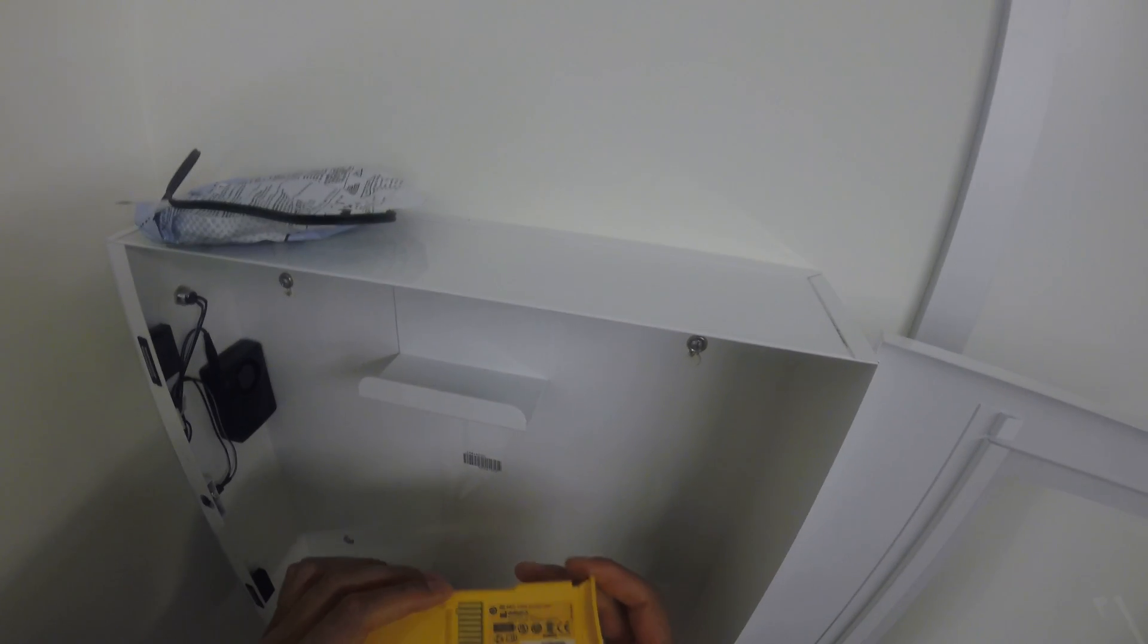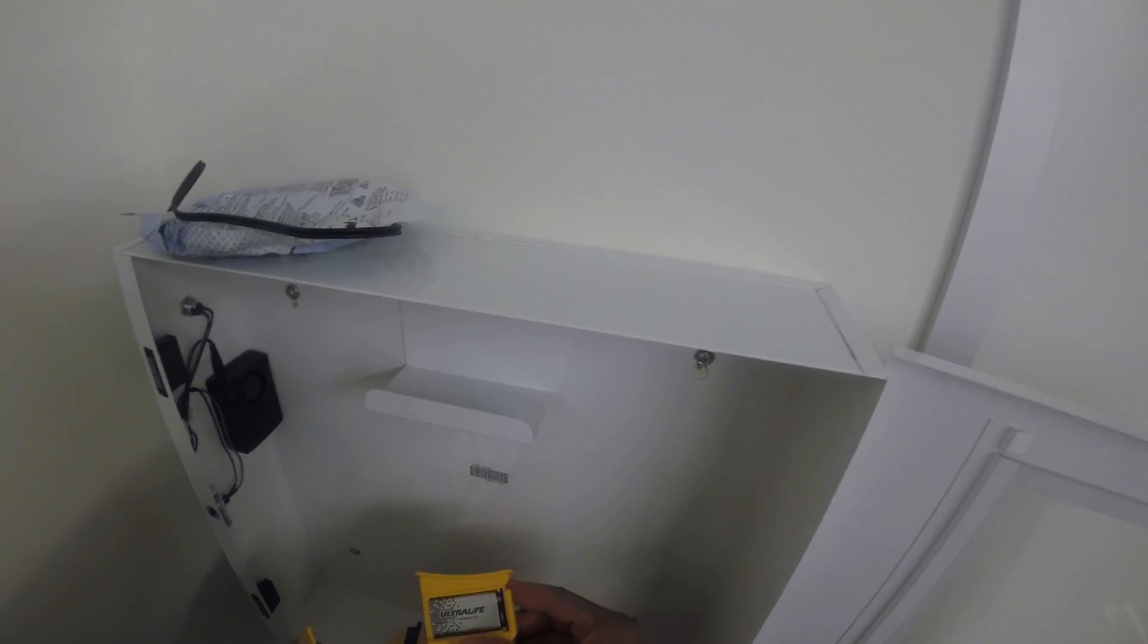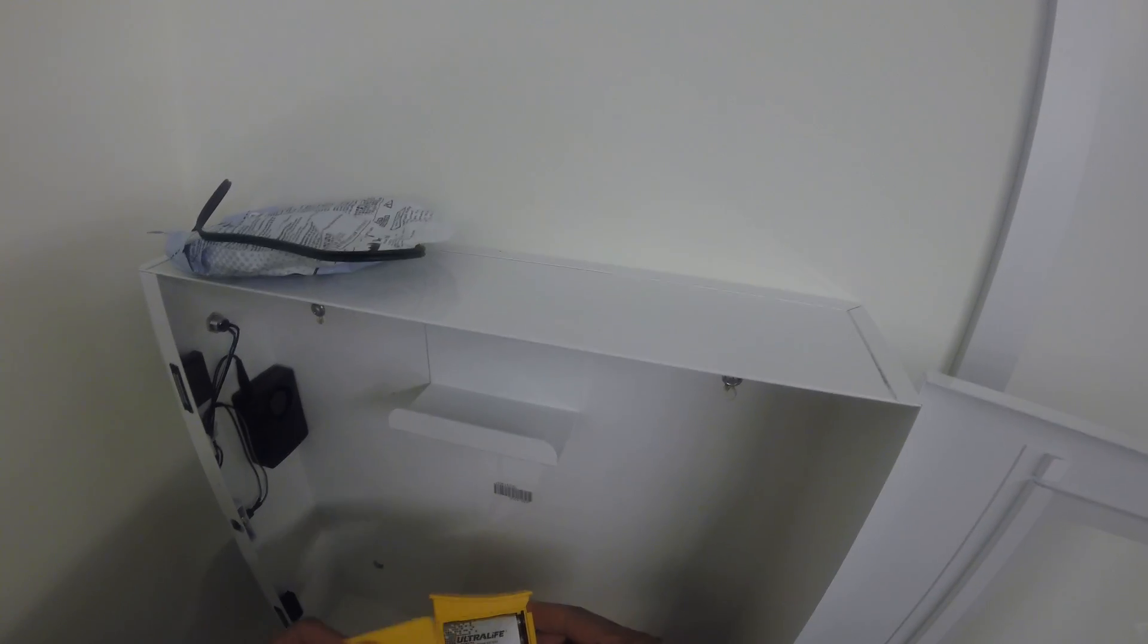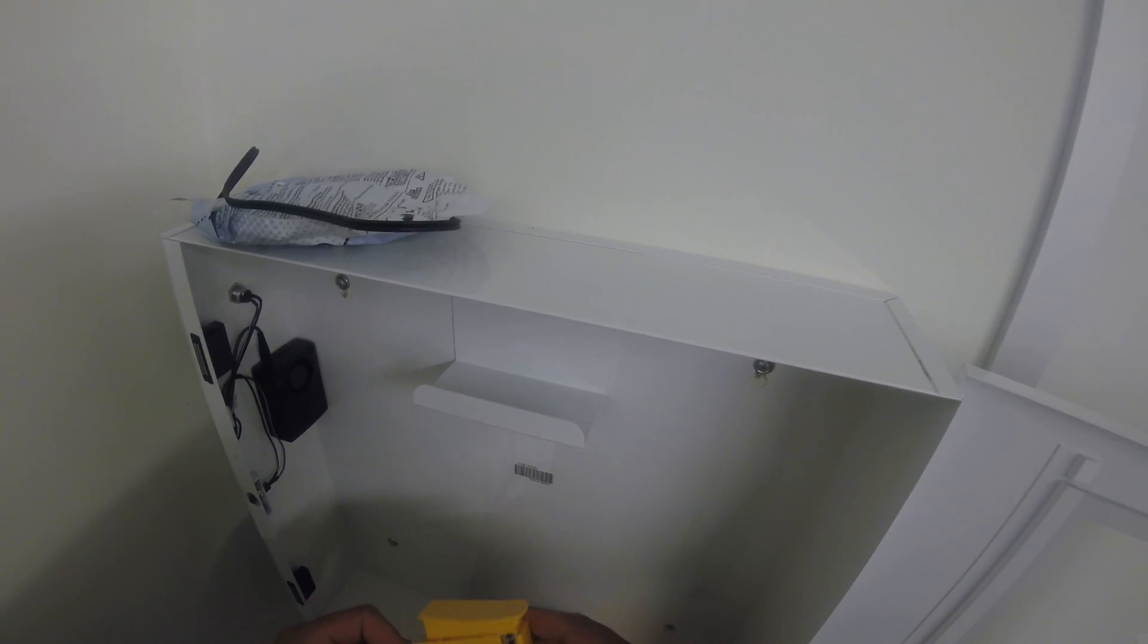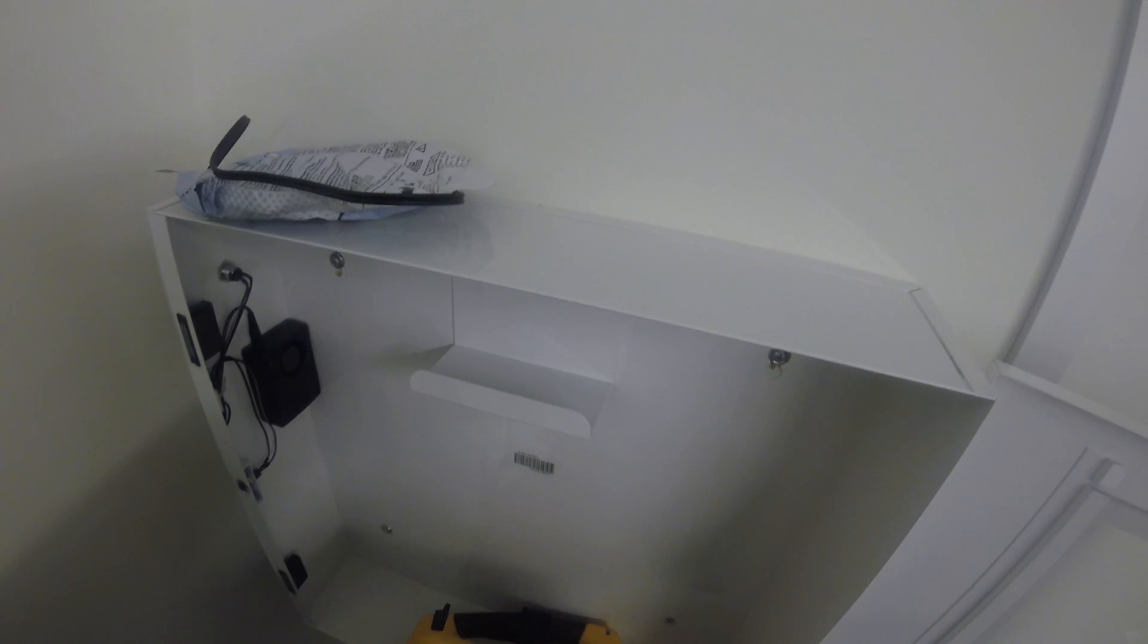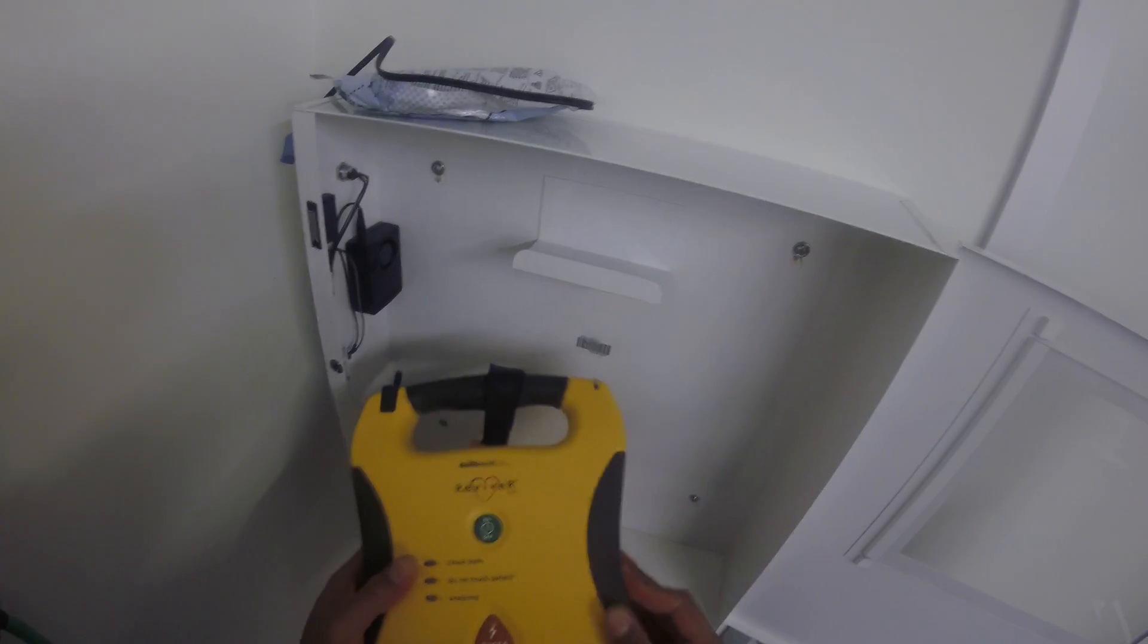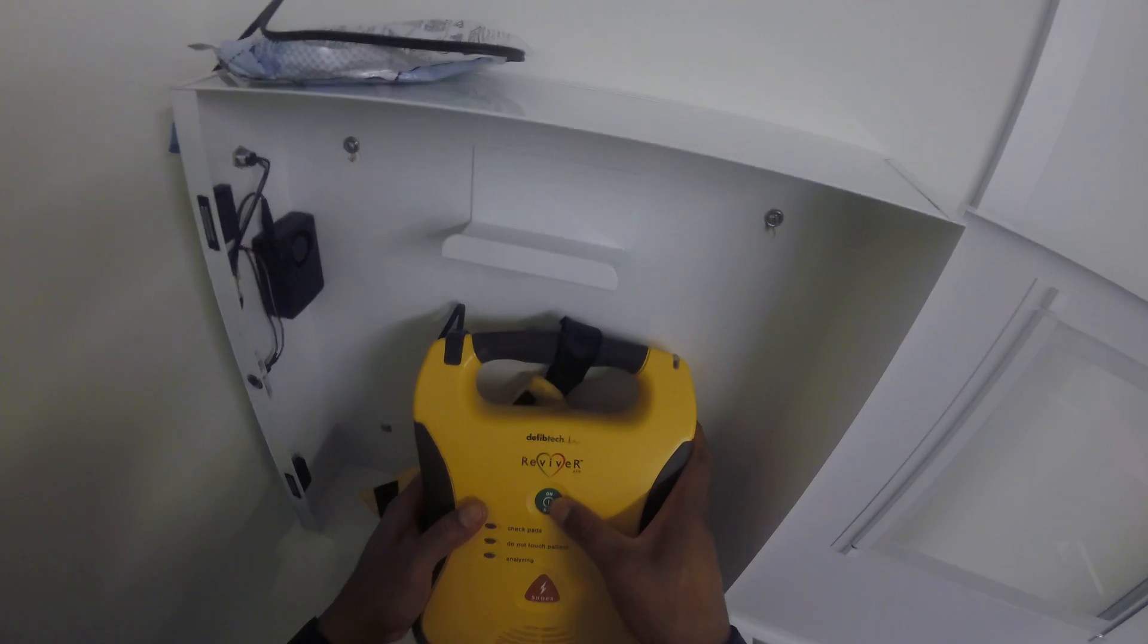The expiration date on this is not for a few years, so this is good. But I'm assuming that the battery in here is bad, the nine-volt battery. In order to check that, I'm going to pop the battery back in and then press and hold the on button.